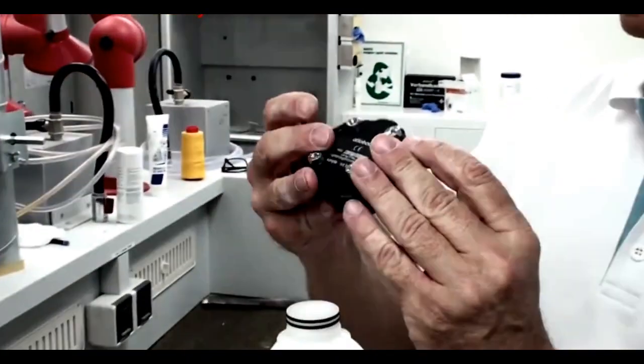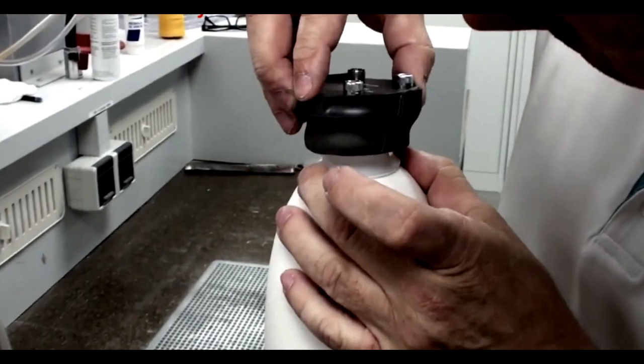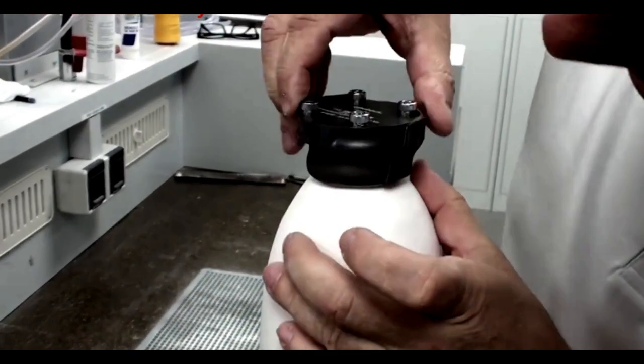Place the DVS pump on the lamination dummy. Note that the orientation of the expulsion valve is on the medial aspect.